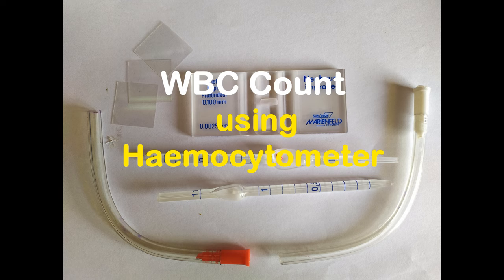You may use blood from any animal to count the WBC population. Total leukocyte count or TLC is a more commonly used term for WBC count.